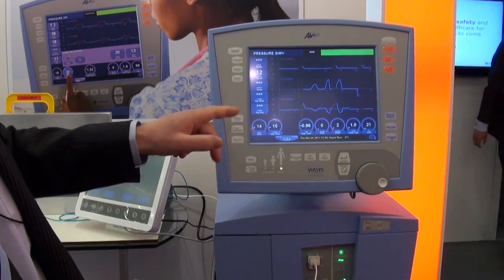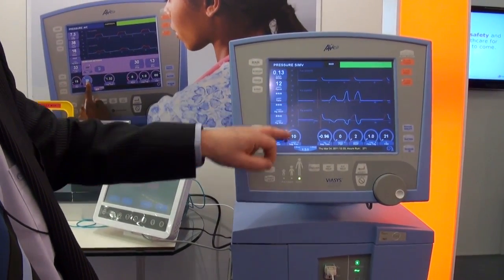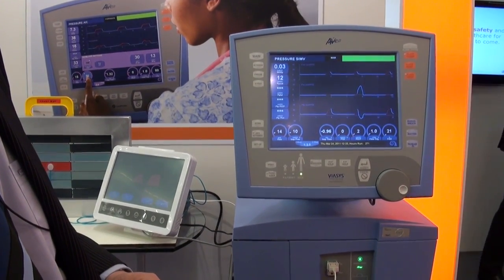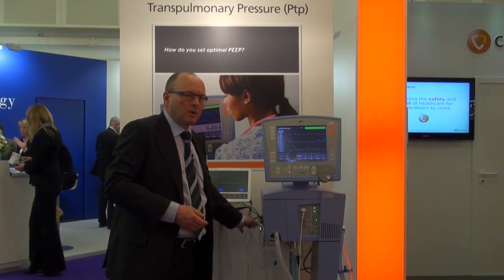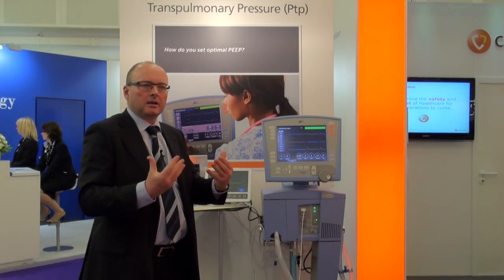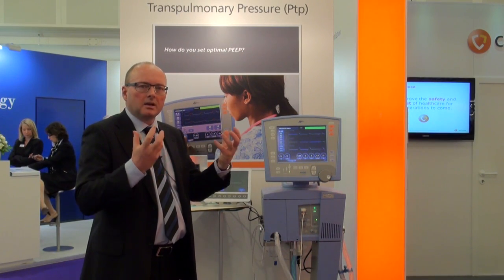I'll squeeze the balloon a little bit to show you what that means. Pressing the balloon generates an esophageal pressure, and then transpulmonary pressure is airway pressure minus esophagus pressure. This is a very simple way to measure transpulmonary pressure that is clinically very acceptable to do. I think the nursing teams will have no problem working with this technology, and once you understand what the parameters mean, I think you'll see an effect on outcome because finally the lung is protected.